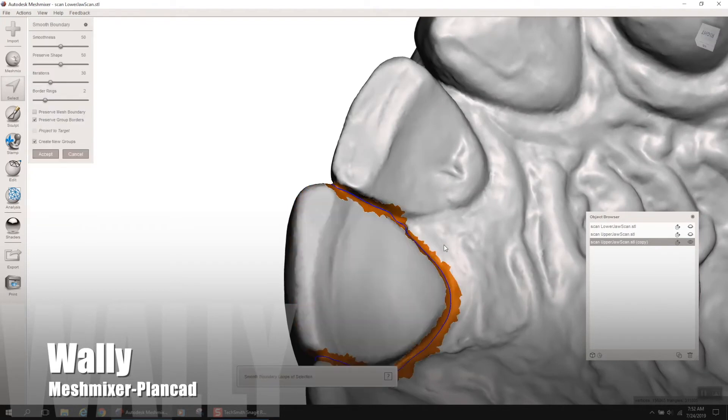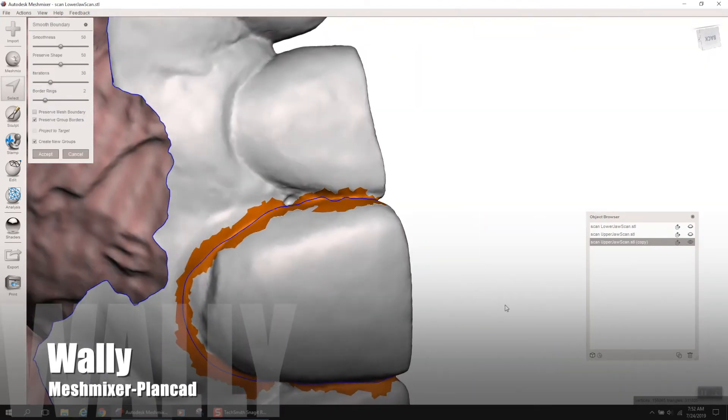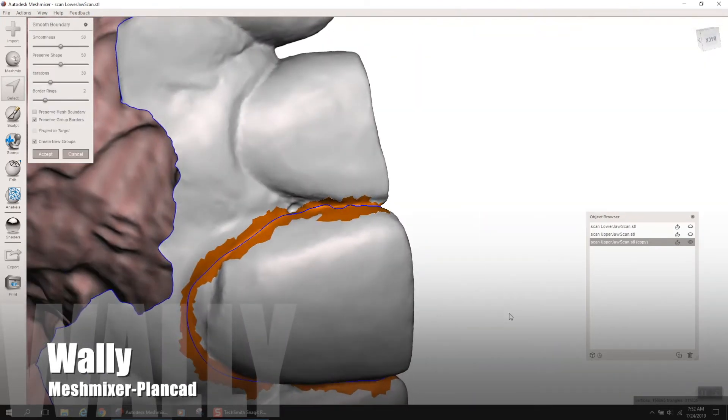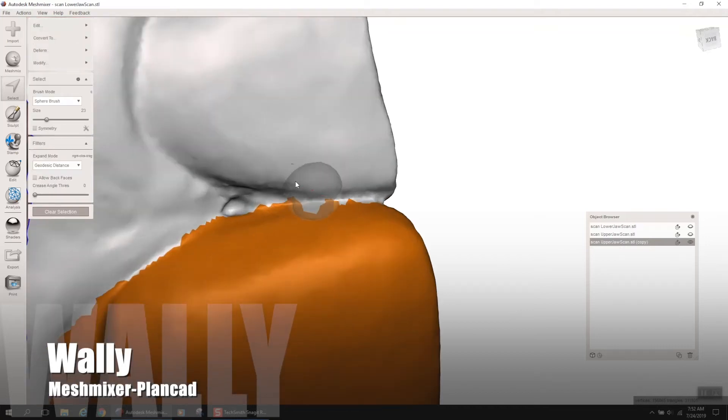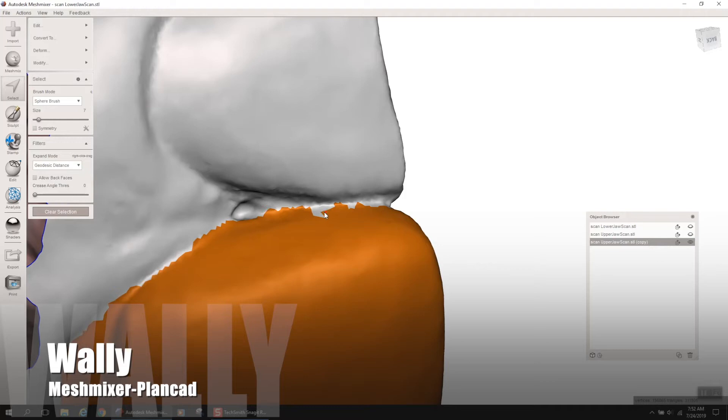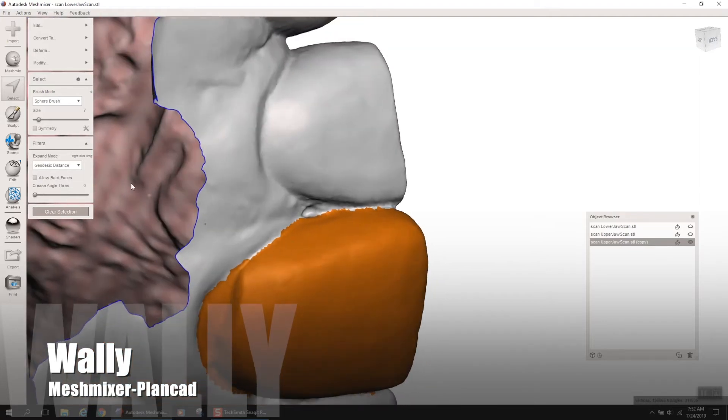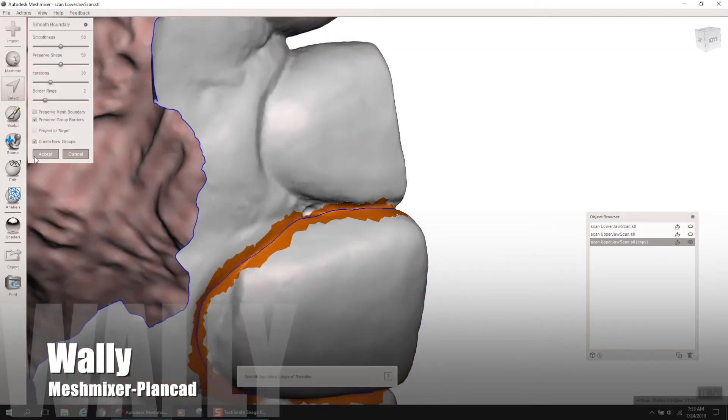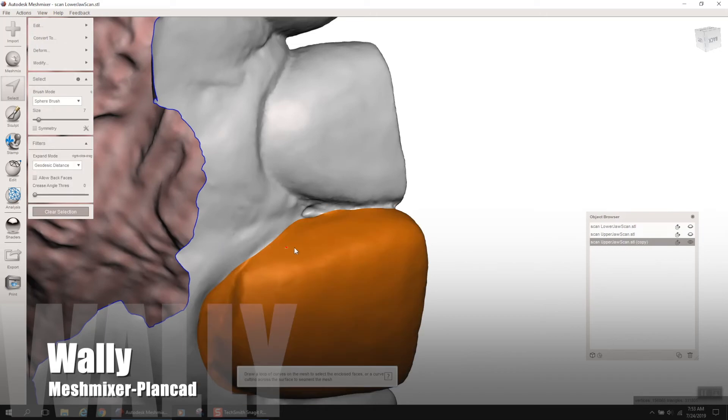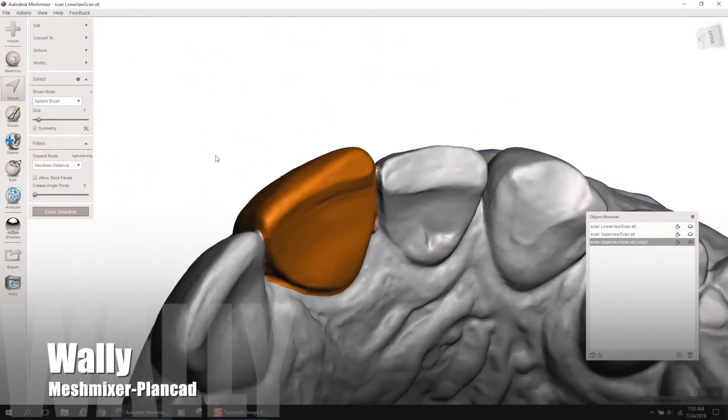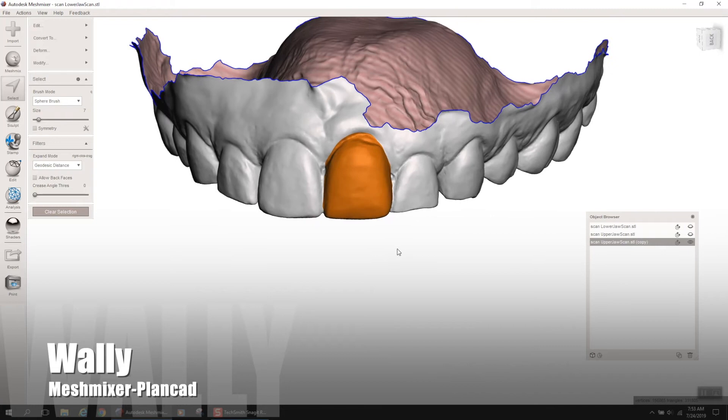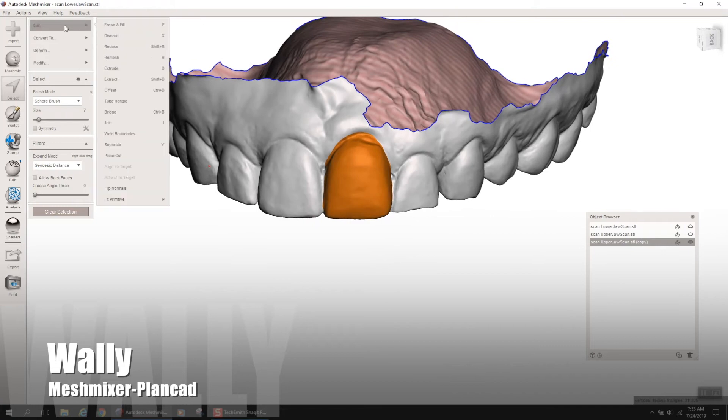So, we're just wanting to delete, virtually extract this tooth number 9. So, here we go, we're a lot better here. I think I could do even better in this facial and interproximal space here, right between 9 and 10. I'm just going to smooth that up, making my selection tool pretty small, and just getting in that little crevice there. And once again, not perfect, but I'm going to hit B, as in boy, on the keyboard, and watch that line just get gorgeously smooth. And there it is. Now you have this perfect border.